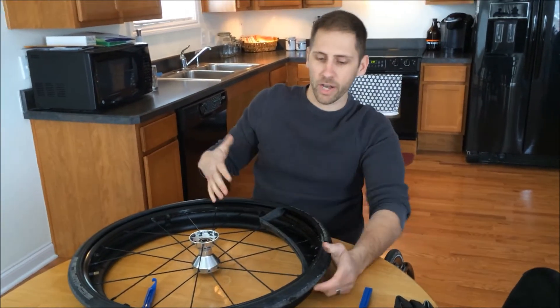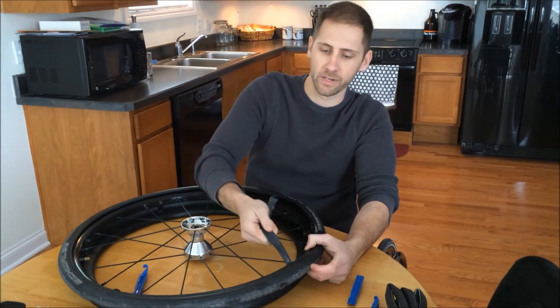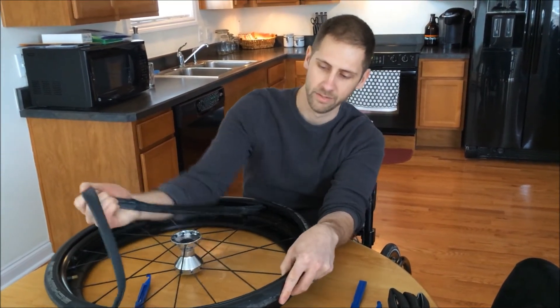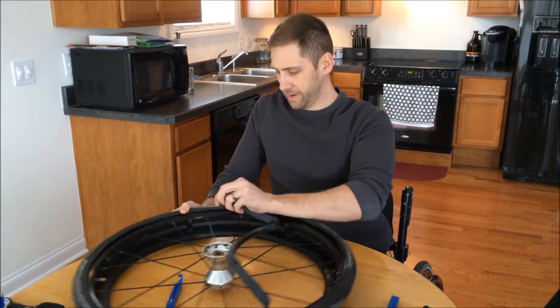That's actually a good idea because if you have something in your tire that punctured the inner tube, it's a good idea to take the tire off anyway and feel around the inside of the tire — you don't want to put a brand new inner tube in if it's just going to pop as soon as you put it back on. So I'm going to pull this inner tube out.